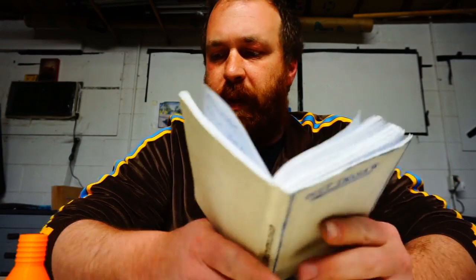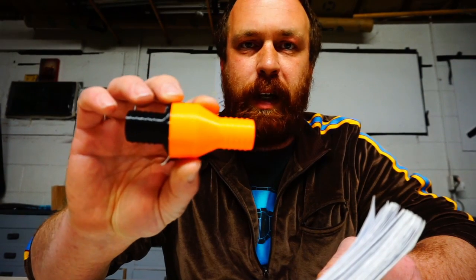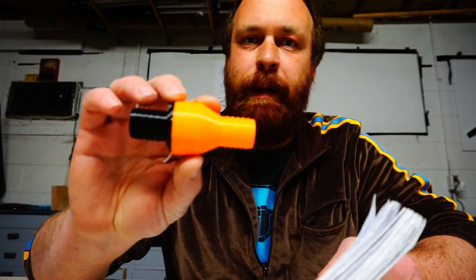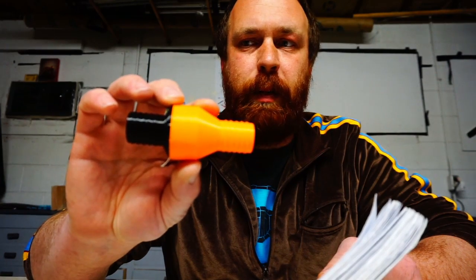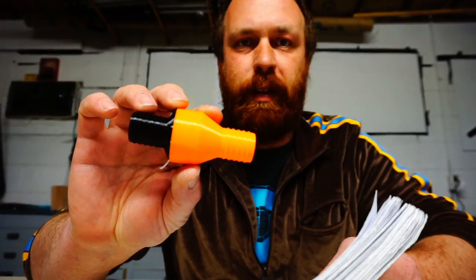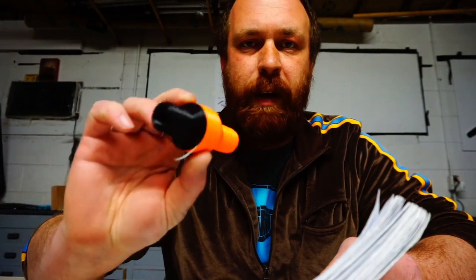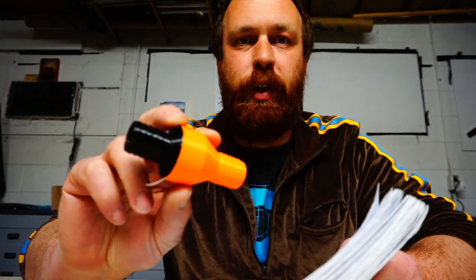What I want to do in this video is give a little bit of my thoughts on how you might build one, and then I'm going to get to this check valve, which is a piece of a ventilator. You can print it in about an hour and ten minutes, and it just uses two 3D-printed pieces, a piece of a shopping bag or a Ziploc bag, and one screw.